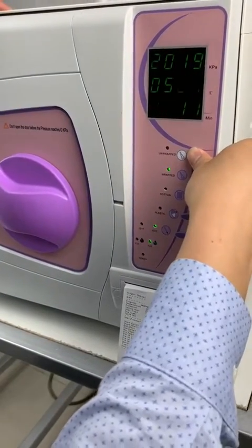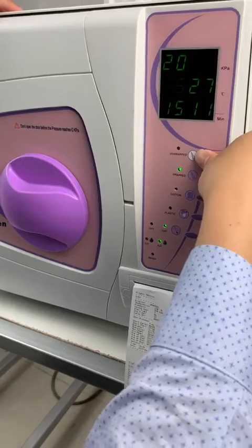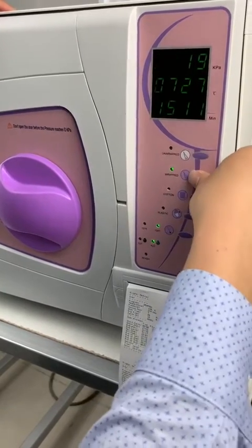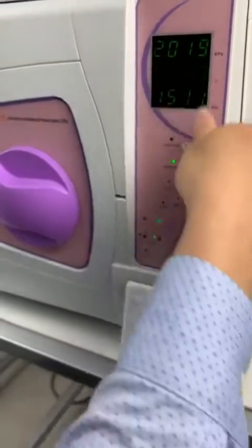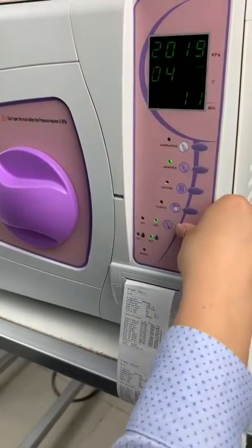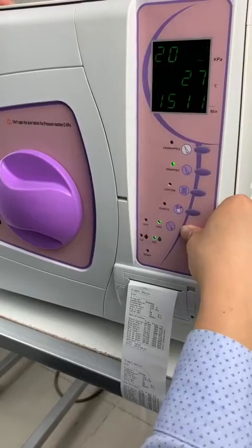We can choose May, June, July, or you can go back to May, April, and then you can choose the date and the time like this.